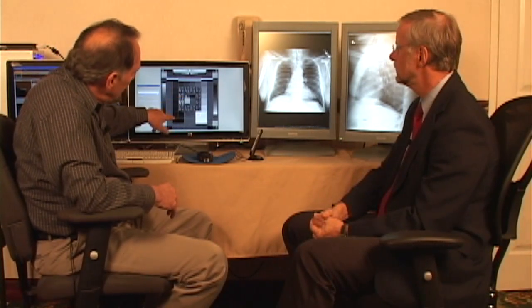If it's treated correctly. Because the TG18 QC test pattern is in a DICOM format, both an 8-bit and a 16-bit TIFF, you can inject a test pattern in addition to an anatomical test pattern, a test image, into the system and see what it does to it. And if there's something wrong with the LUT, that it overcorrects for some reason in some area of the response all the way around from the darkest to the brightest areas, you will notice the difference in the image quality.